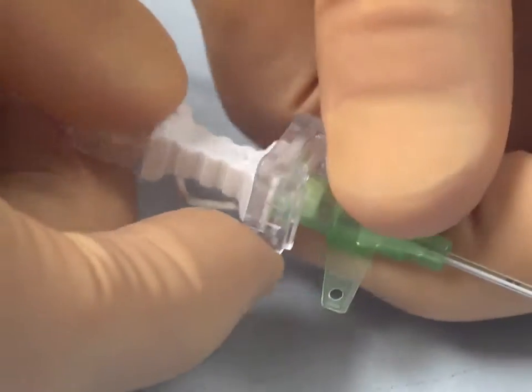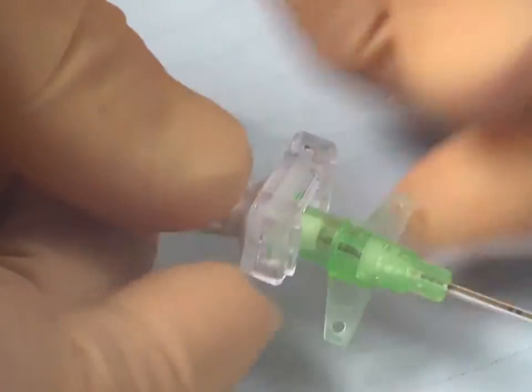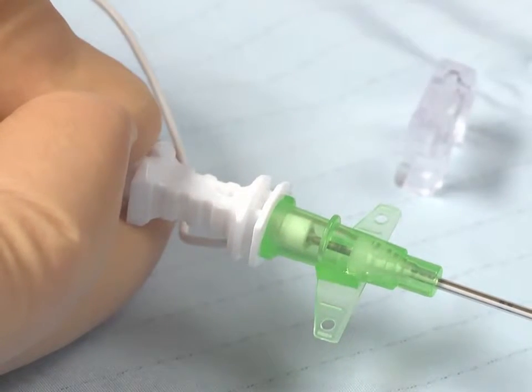If you choose not to use the fixed clip, you can easily detach this from the needle and sheath, as shown.